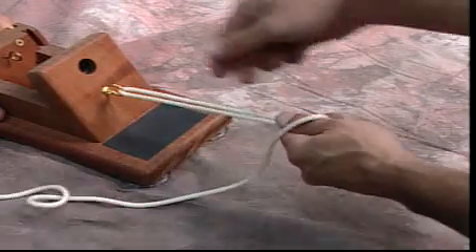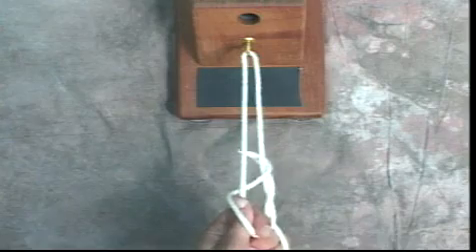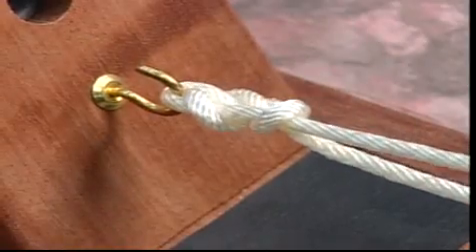The loop limb is thrown over the post and brought through. The loop is then brought over the loop limb and back through, then back over through the post, around the post and the loop limb and through our original thumb loop. It is then cinched down.